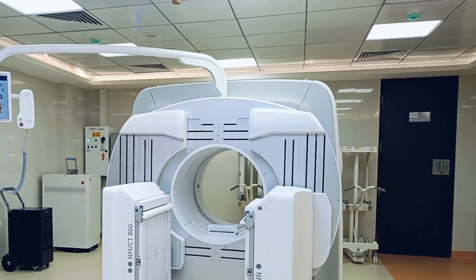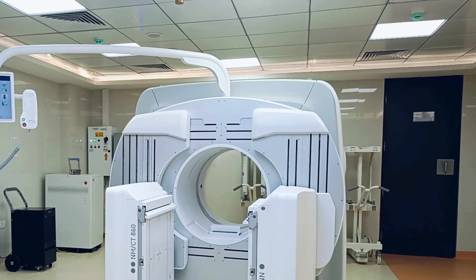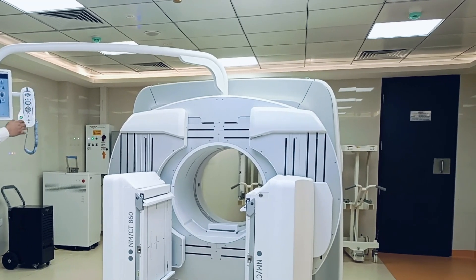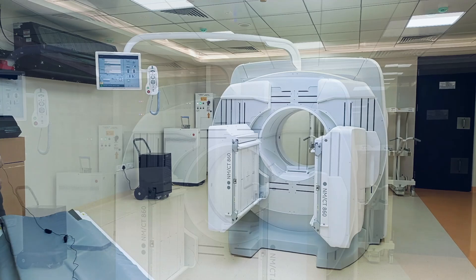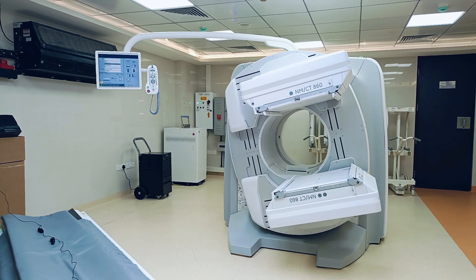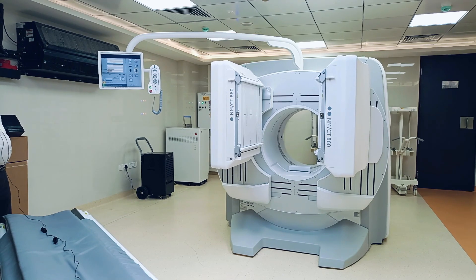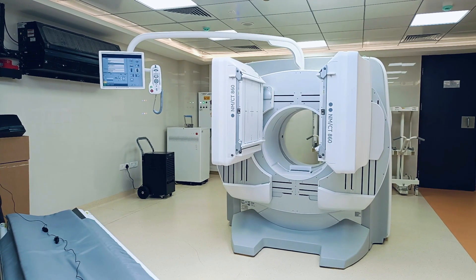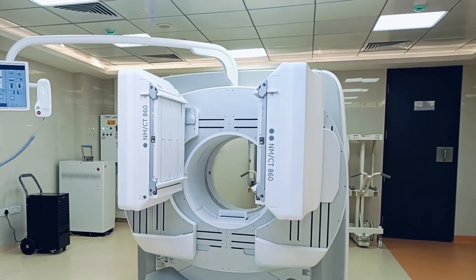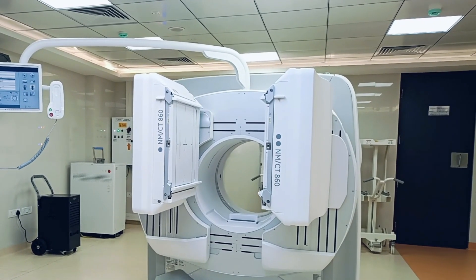The next option is vertical high. Select vertical high and press set. This mode is used for adults — for the upper part of the body. In and out movement adjustment is also possible.